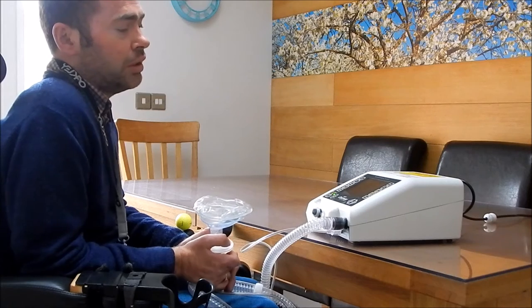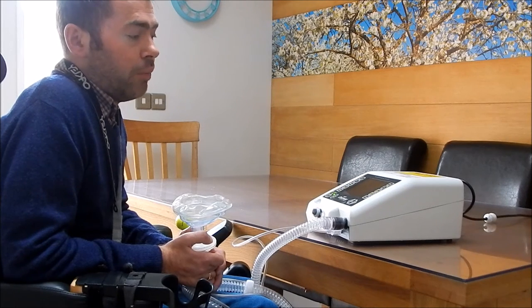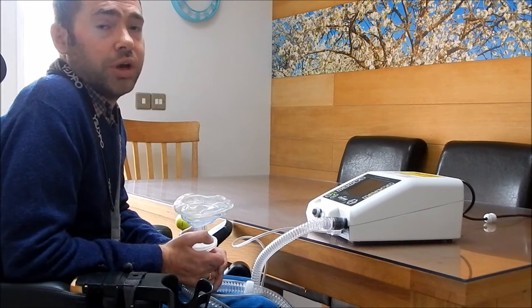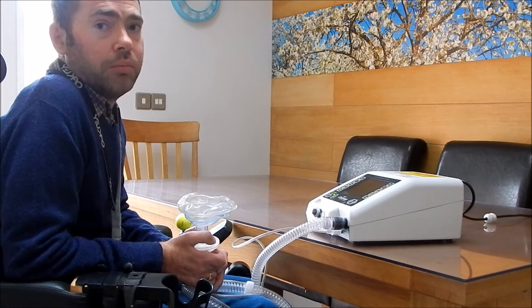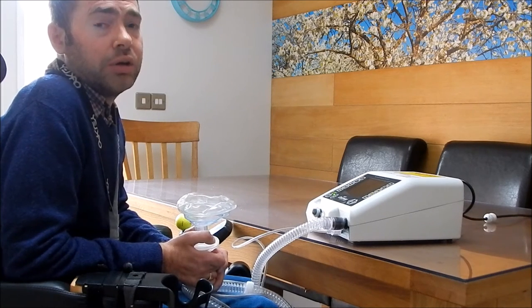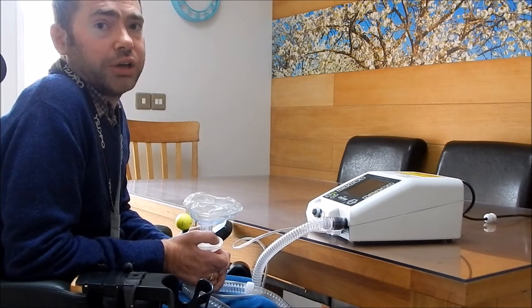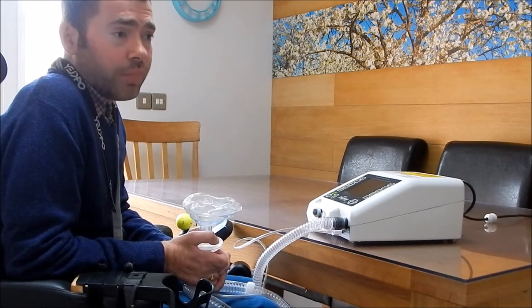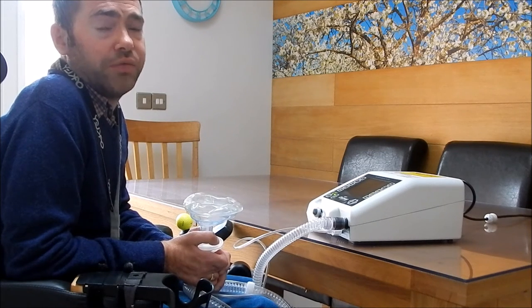Here's the machine - fairly simple. Mine was set up by my ventilation nurse and I believe it's actually locked so I can't alter it, but it's set on the most powerful setting you should dare set it on, because my lungs are still reasonable enough that I can go with it. Obviously your ventilation nurse would hopefully set it up for you and recommend the best setting for you.